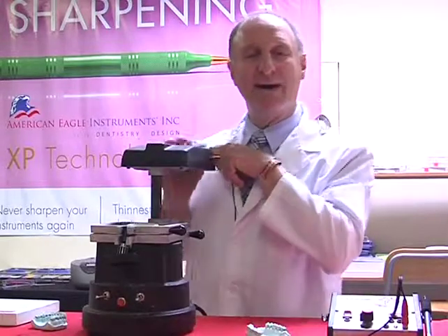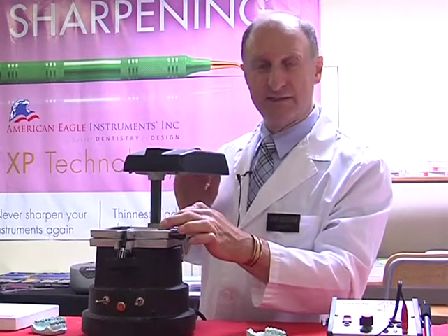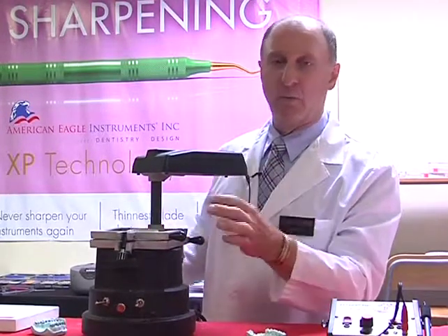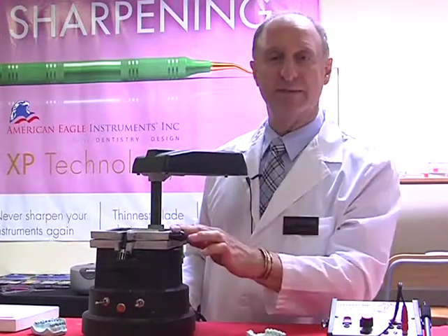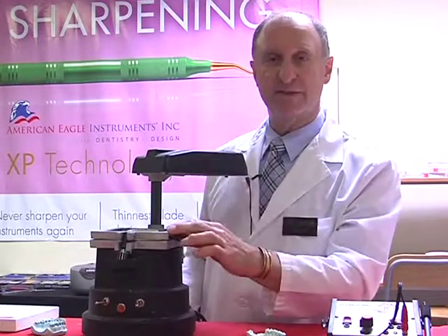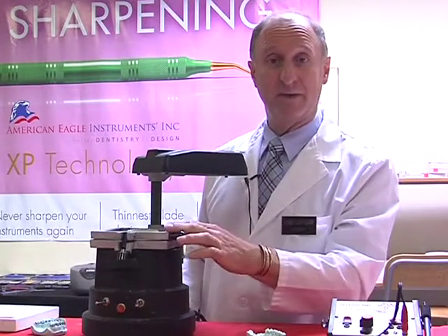I normally allow a good 20 seconds for the vacuuming to take effect, and this is to ensure that I get perfect adaptation over the model. Once the material has cooled sufficiently, I can then remove it. There are a couple of sprays available in the marketplace which we can spray on the surface. They work nicely to cool the material and contract it onto the model even more.